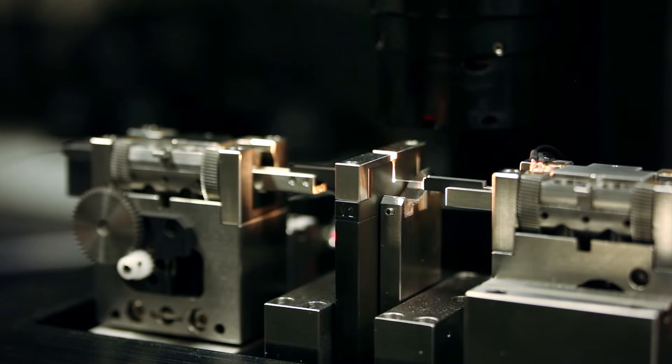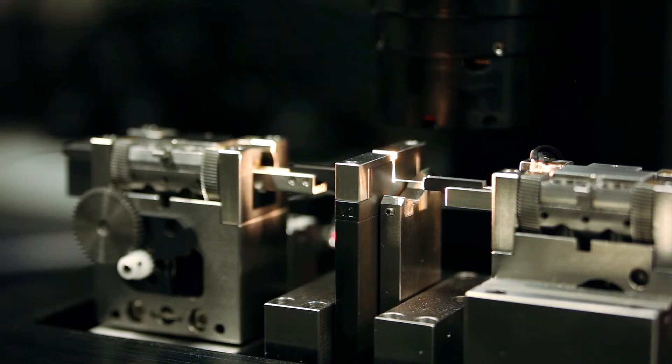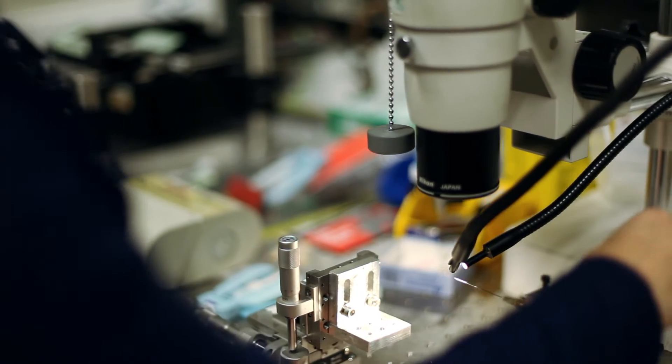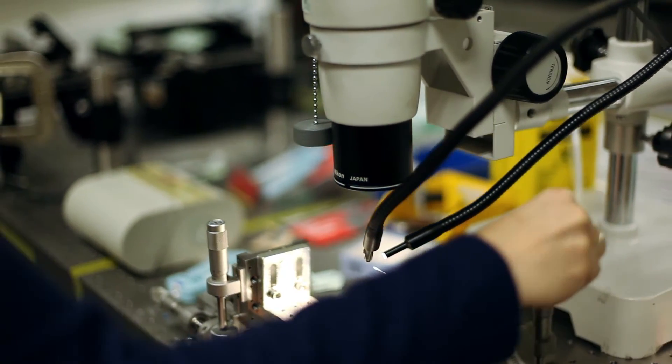This will be a tool which will help surgeons make decisions on the spot. They have great images from beforehand and they can have some great outcomes afterwards by taking the samples to the lab, but when they're actually there on the spot they don't really have good information.